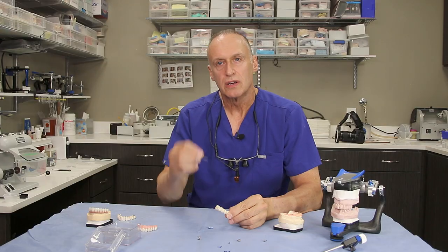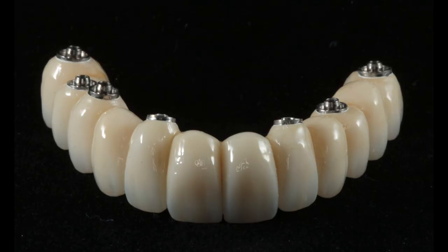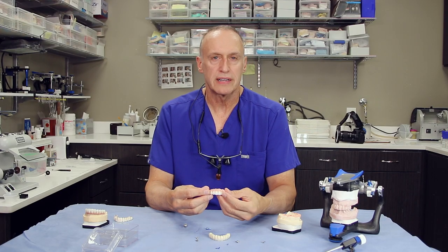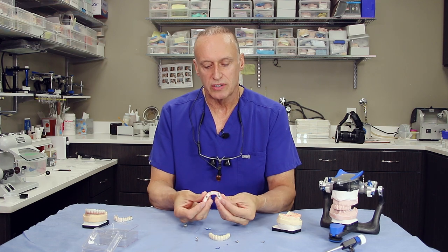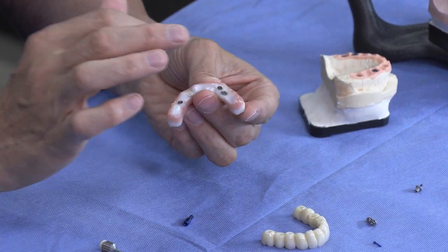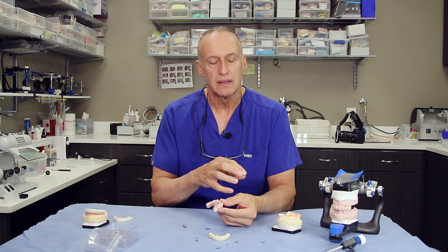I talk in the videos about concave versus convex — and that's what makes or breaks the ability to clean the prosthesis. At this point I'd like to compare and contrast the difference between a true implant bridge and an all-on-four. This prosthesis is the traditional all-on-four, and frankly I don't care whether they call it all-on-four, all-on-six, all-on-eight, or all-on-x — which means they'll decide how many implants you get sometime after your treatment plan. It's all the same. All-on-four creates a prosthesis that is concave — you cannot clean it. The implants are angled, which means the abutments go onto the angled implant in a fashion that makes the cleansability even worse.